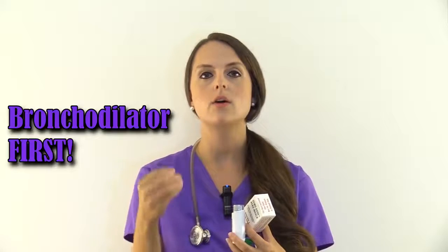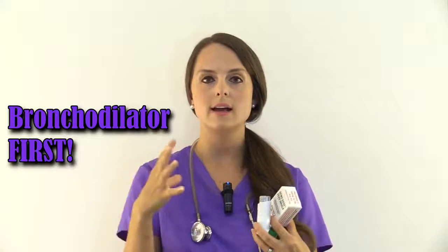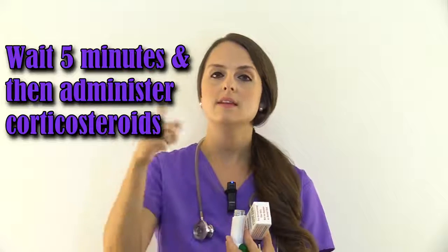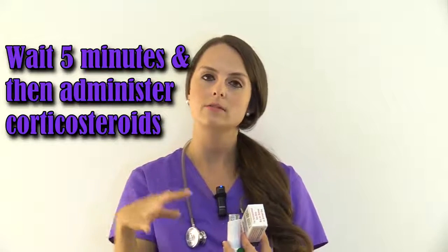Say you were going to be giving a bronchodilator inhaler and a corticosteroid inhaler. So you have 2 inhalers. It's very important you know which one you need to give first. The first one you want to give is the bronchodilator, because it's going to open up and dilate those lungs. Then you need to wait 5 minutes and then administer the corticosteroid, because then the corticosteroid can get in there and do its job by decreasing the inflammation.